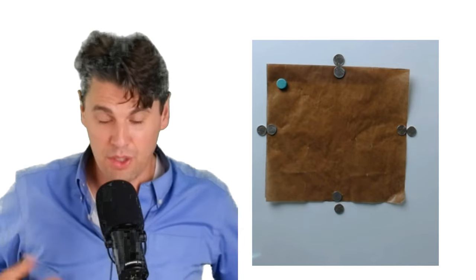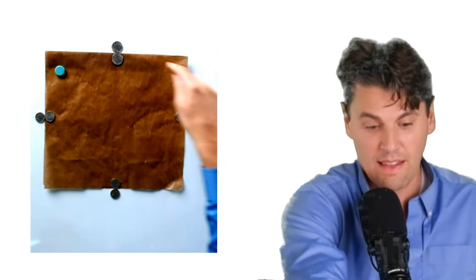You can additionally place another marker to establish your orientation. Each of these coins is actually lined up again right at the edge of the light field, and we're checking each of the four sides.